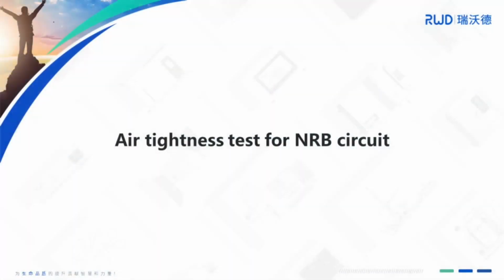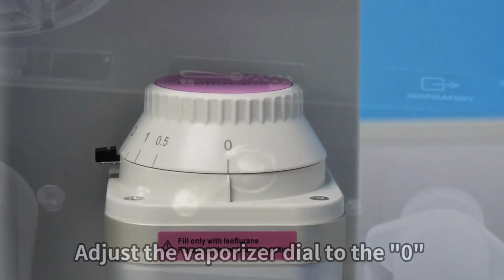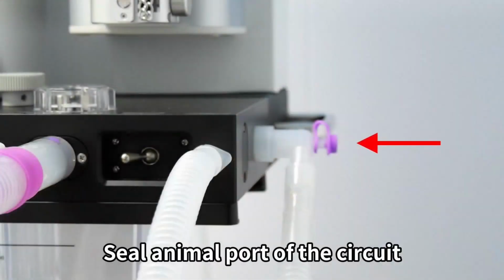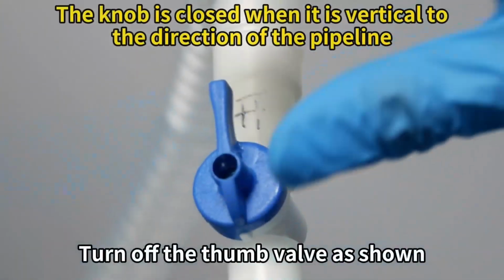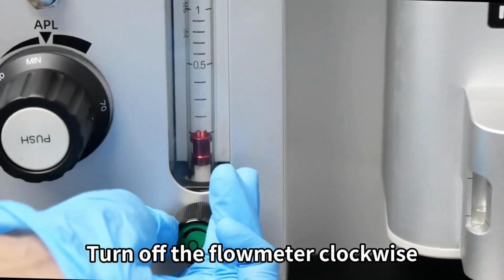Air tightness test for non-rebreathing circuit. Adjust the vaporizer dial to 0. Switch the circuit to the non-rebreathing circuit. Seal the animal port of the circuit. Connect a suitable breathing bag. Turn off the thumb valve as shown. Turn off the flow meter clockwise.